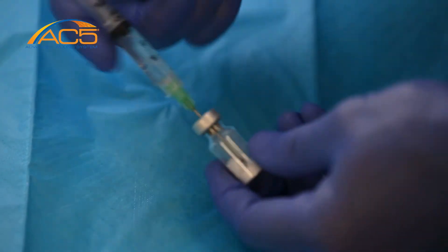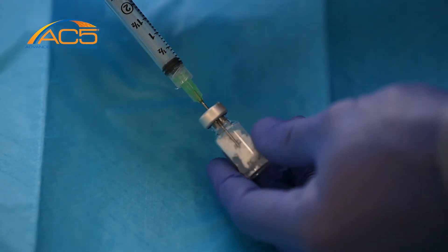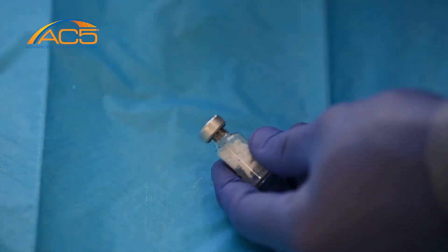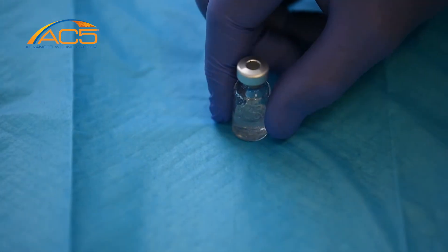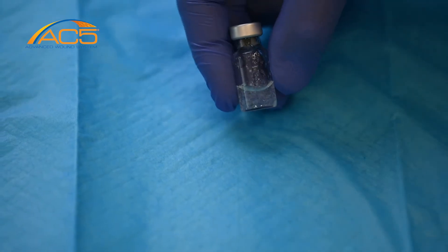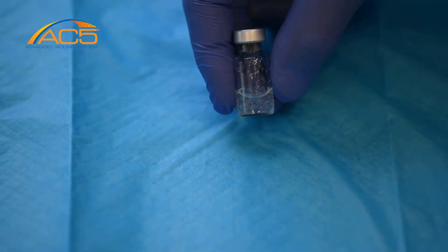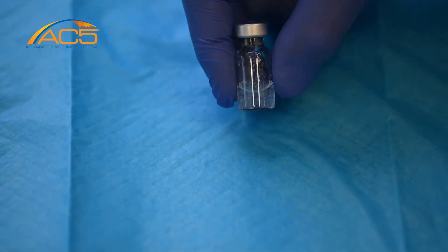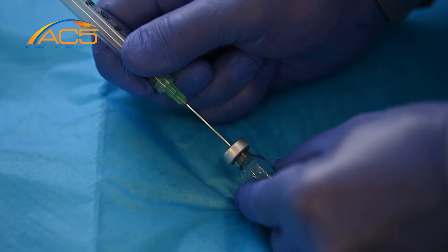Promptly shake the vial to completely dissolve the peptide. An important tip is to shake vigorously with a wrist shake rather than using the entire arm. The peptide is dissolved when the solution becomes clear, which can take as little as 10 seconds depending on the shaking technique.